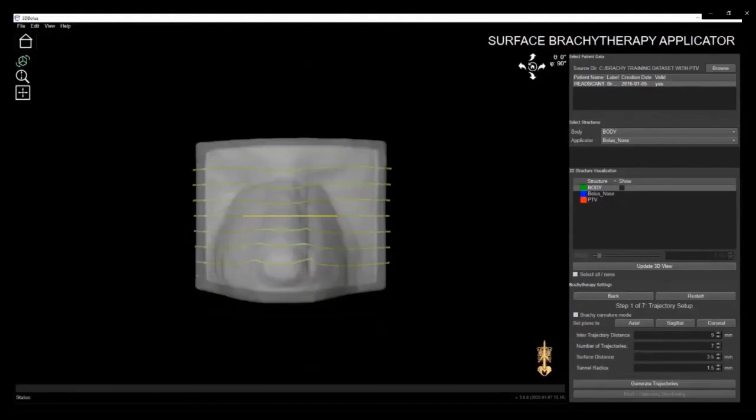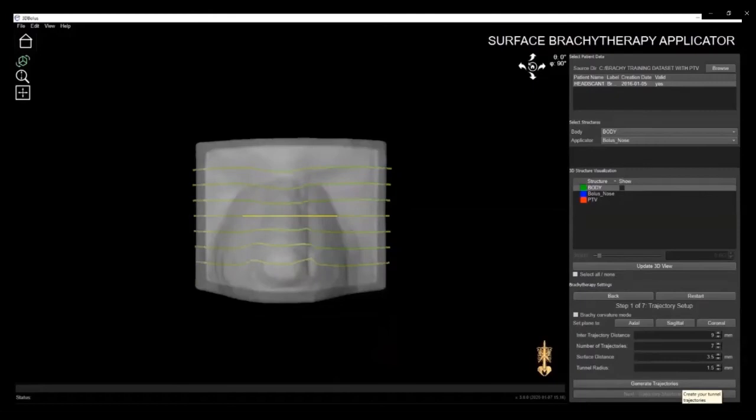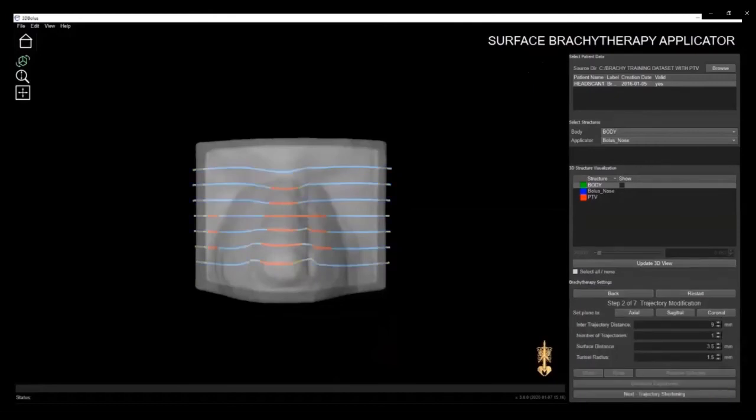Now, back in the normal view, we can go through the process of designing an applicator. We've improved the functionality of our software to make it more intuitive and guide you through each step of the design workflow. So when you're done with one step, you simply click on Next.